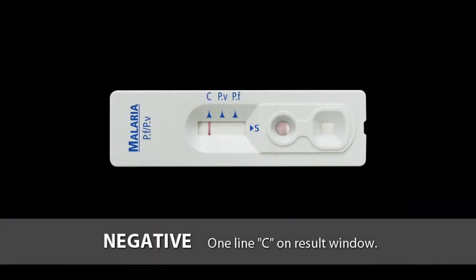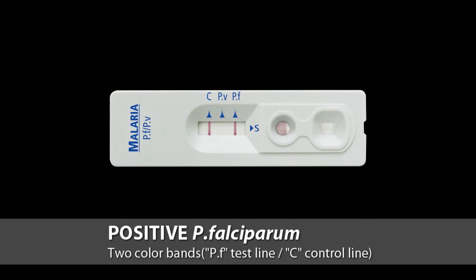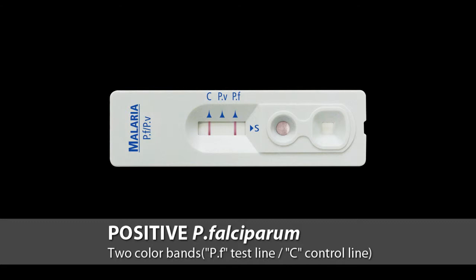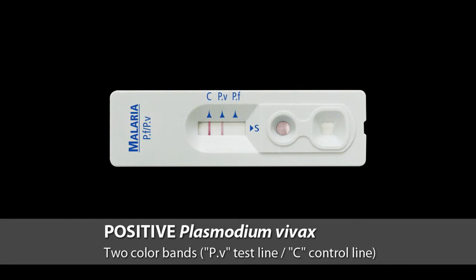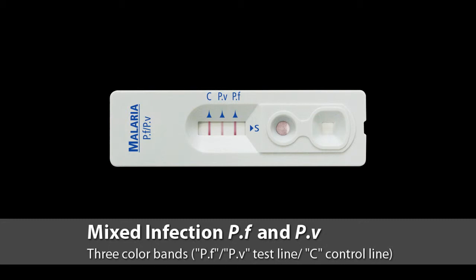Only one line C on the result window means negative. Two colour bands on PF and C line mean Plasmodium falciparum positive. Two colour bands on PV and C line mean Plasmodium vivax positive. You can also see three colour bands on PF, PV, and C line, which means mixed infection.